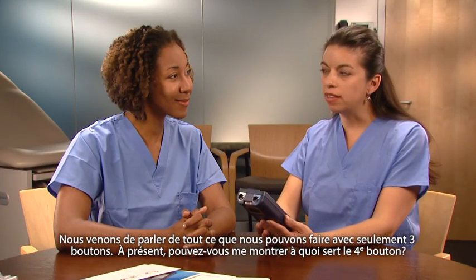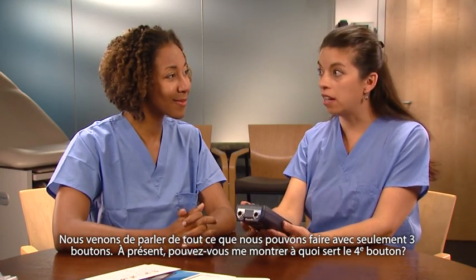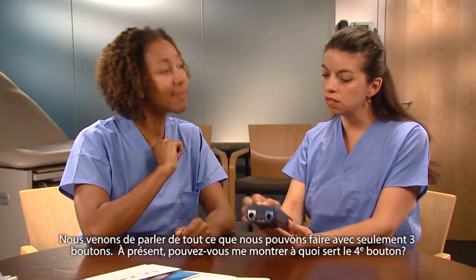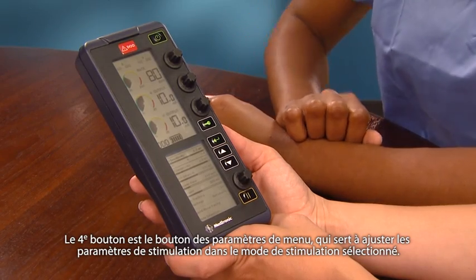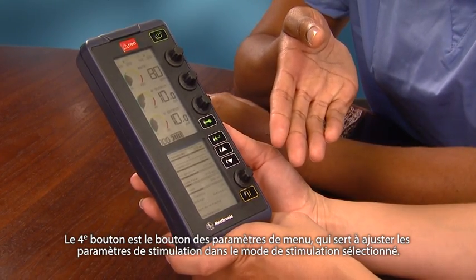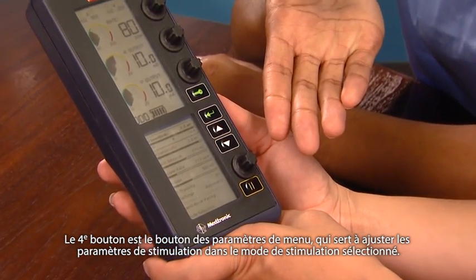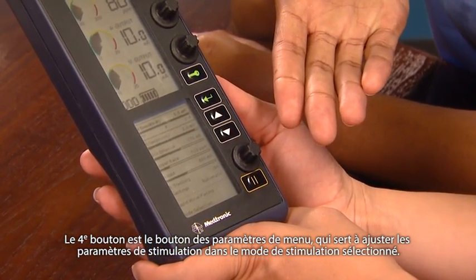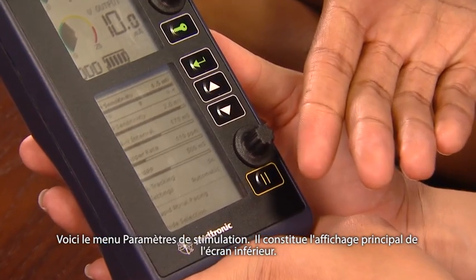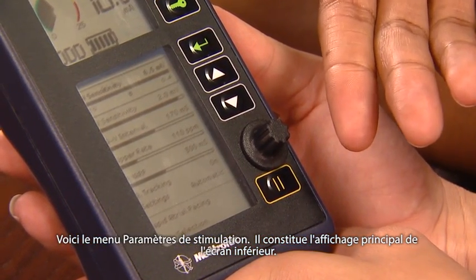We've been talking about all the things that we can do with just the three dials. Can you show me what the fourth dial does? The fourth dial is the menu parameters dial, which is used to adjust pacing parameters in a selected mode of pacing therapy. Here's the pacing parameters menu — it is the primary display of the lower screen.